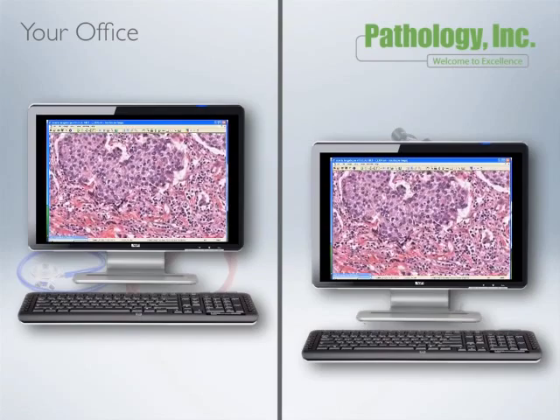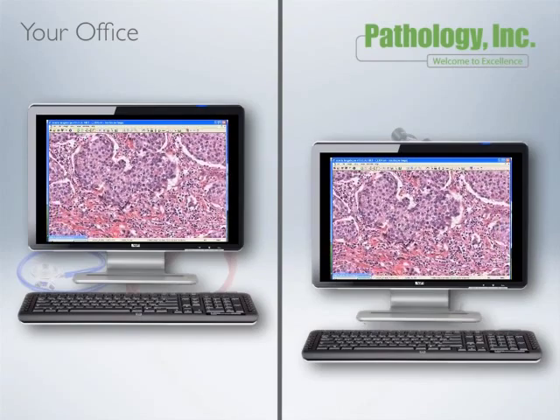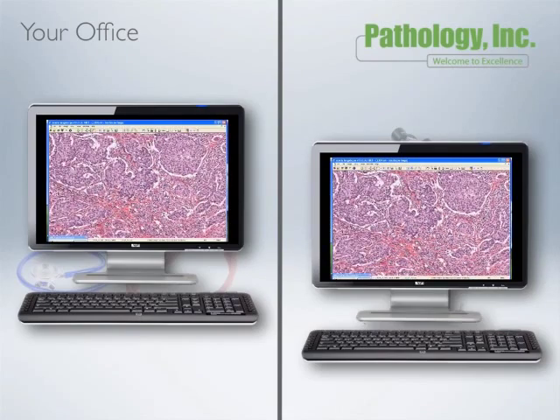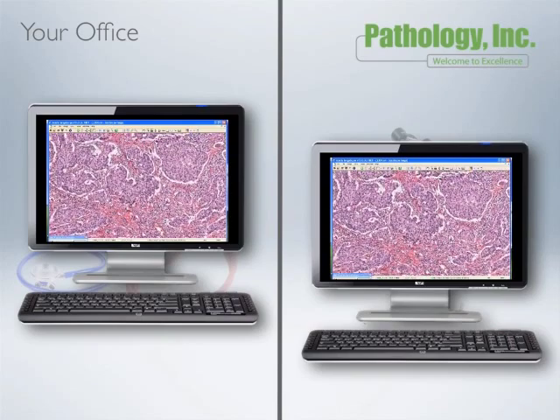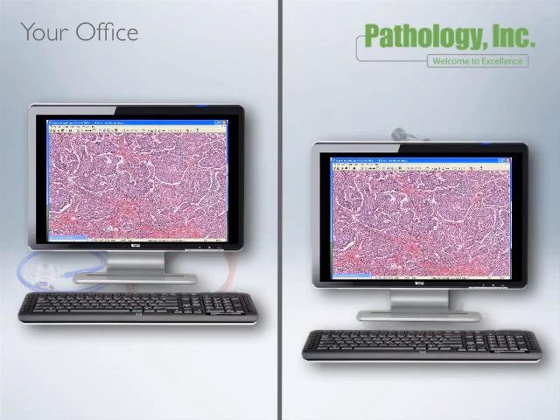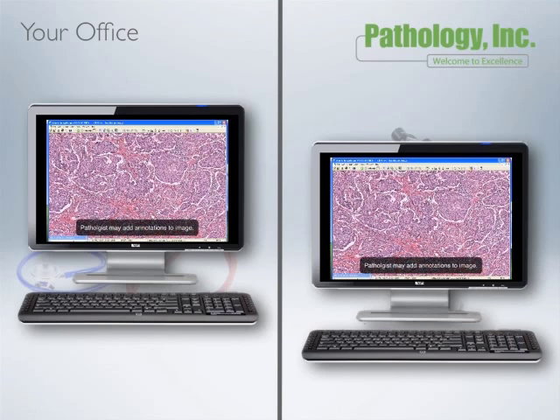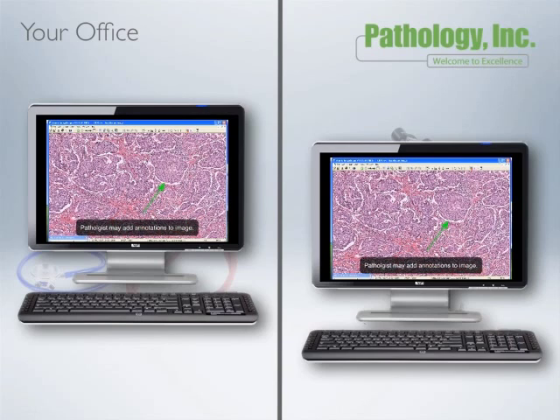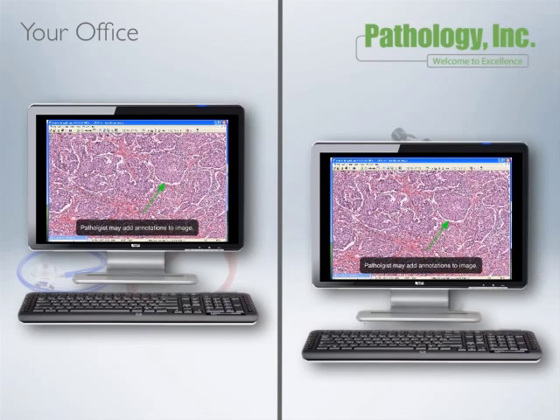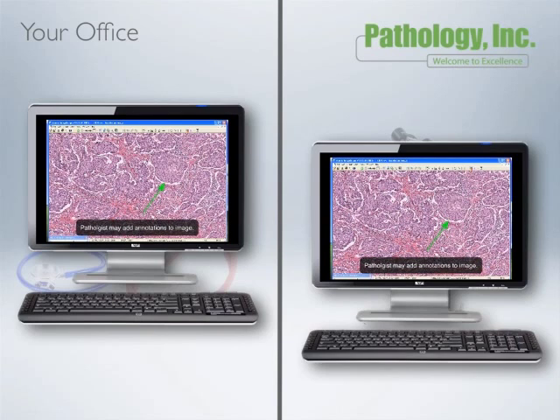The pathologist can pan and zoom the image, and you will see the same image on your computer screen. The pathologist can add annotations such as arrows and rulers. Viewing control can also be transferred from the pathologist to the clinician, allowing for more in-depth discussion.